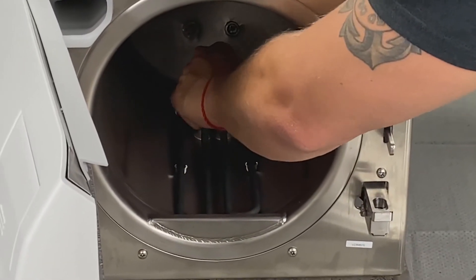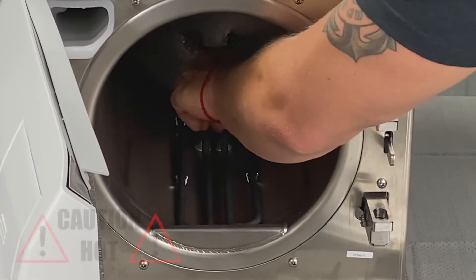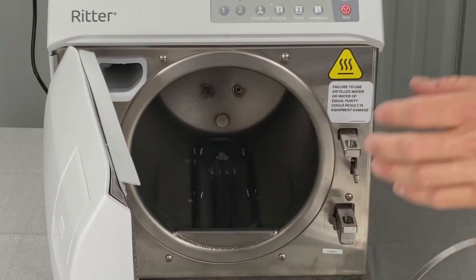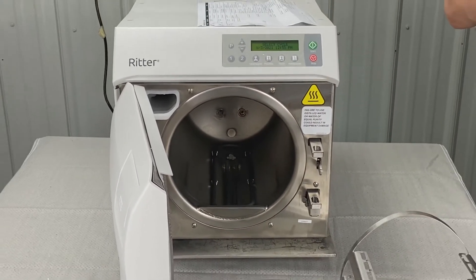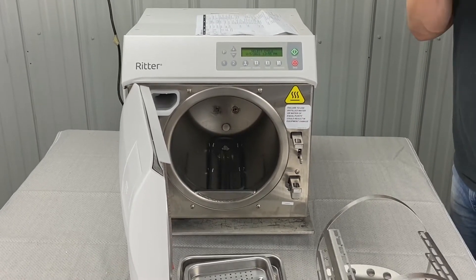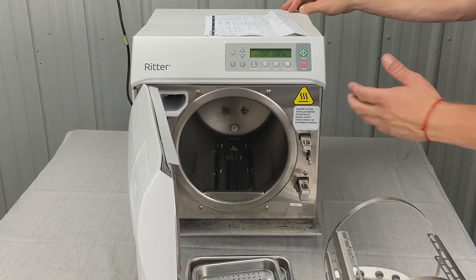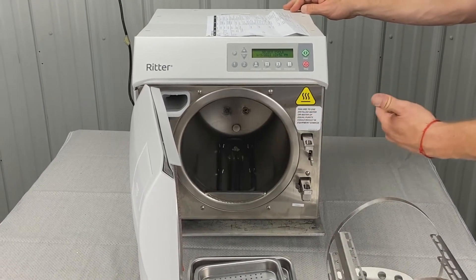It fits back right in the center hole. Don't do any of this while the unit is hot because you'll get burnt. If the chamber filter is clogged, check if it's dirty, clean and replace as necessary. You can also run a speed clean cycle — I would do that monthly.